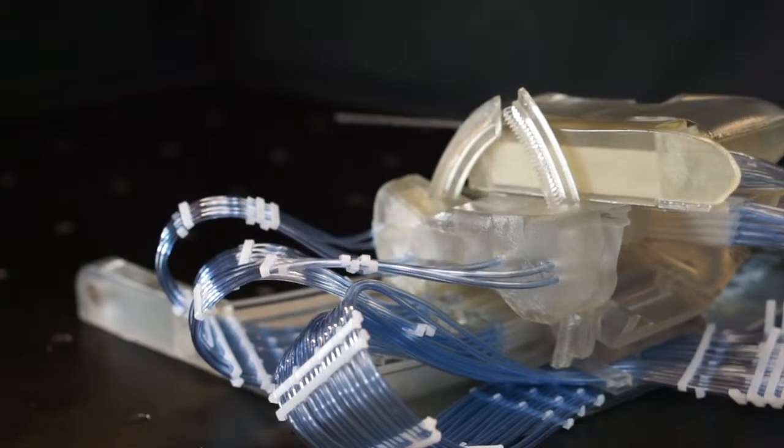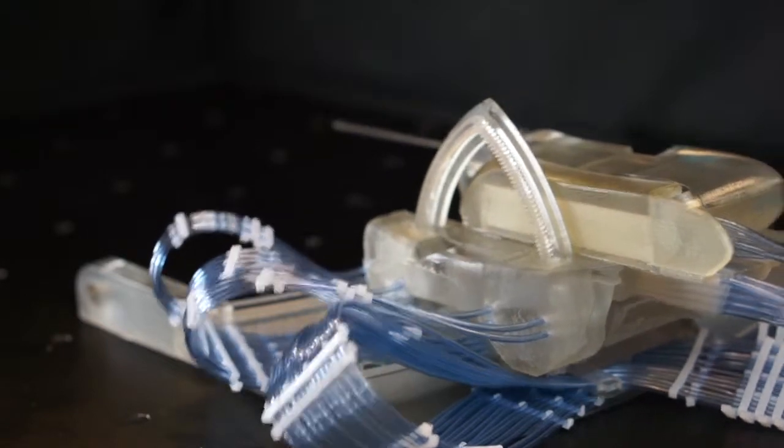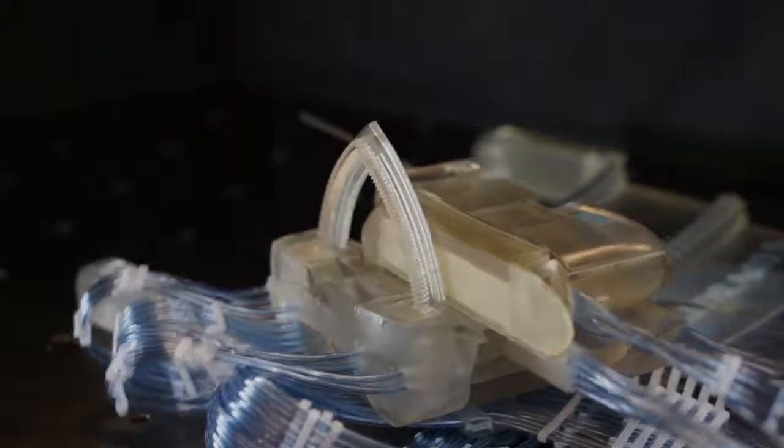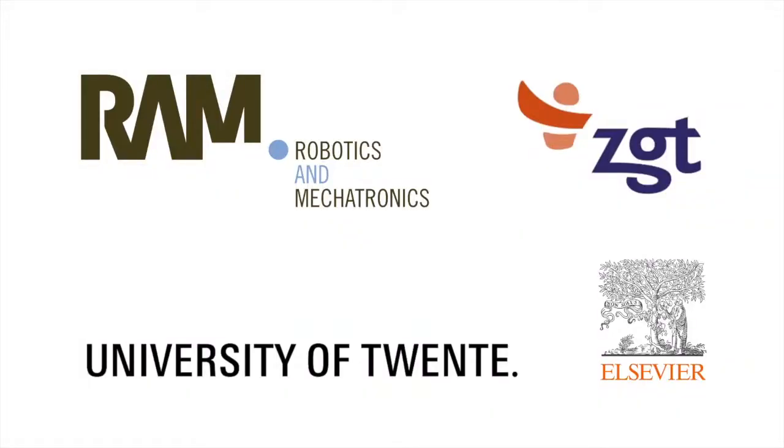All joints together move the robot in 5 degrees of freedom in an MR-safe way. Thank you.